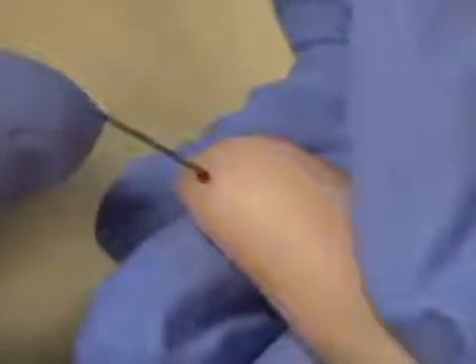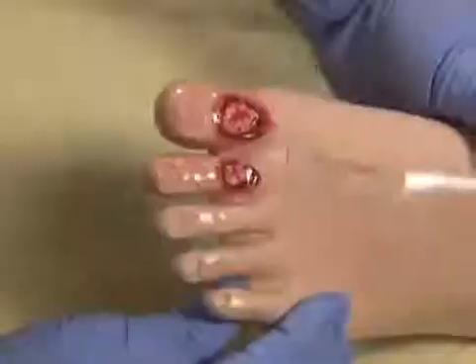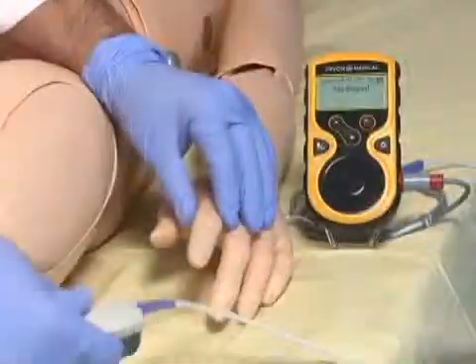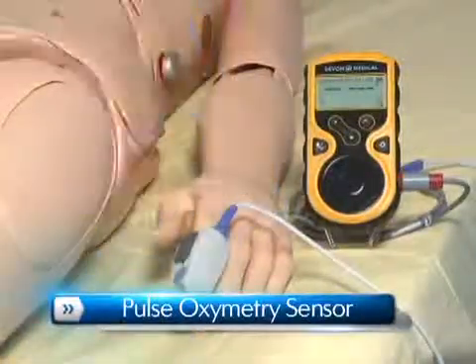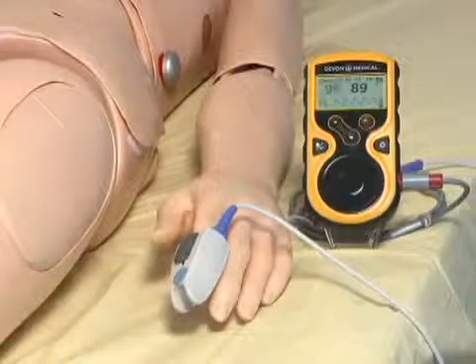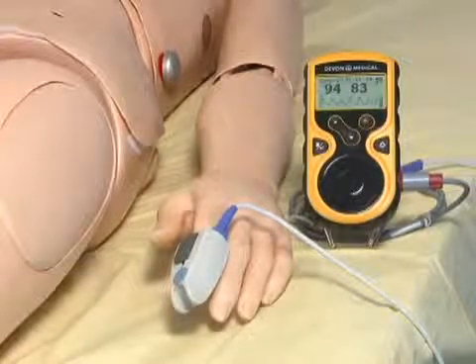Providers can perform finger stick and draw samples of simulated blood, treat decubitus ulcers, and an ulcerated foot. Suzy also features a pulse oximetry sensor within the forefinger of each hand, allowing providers to attach commercially available pulse oximetry devices and determine Suzy's oxygen saturation.